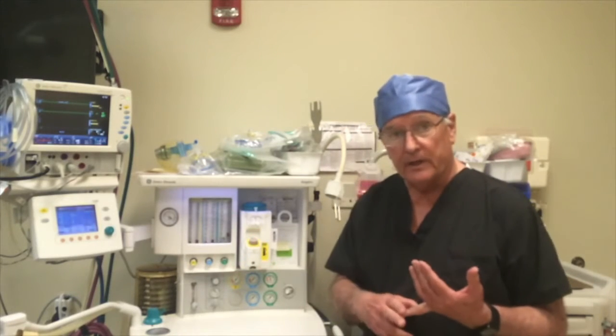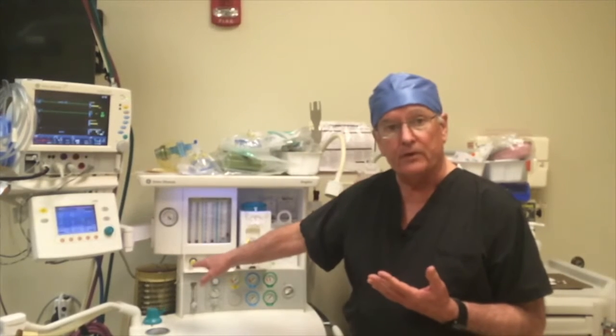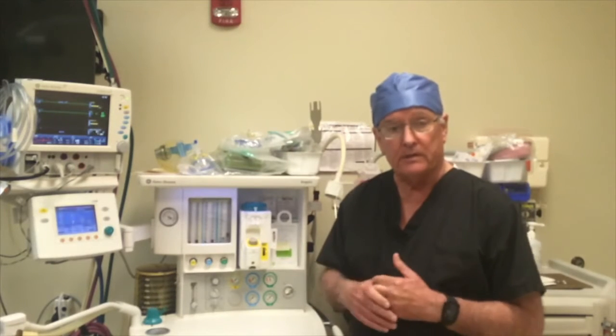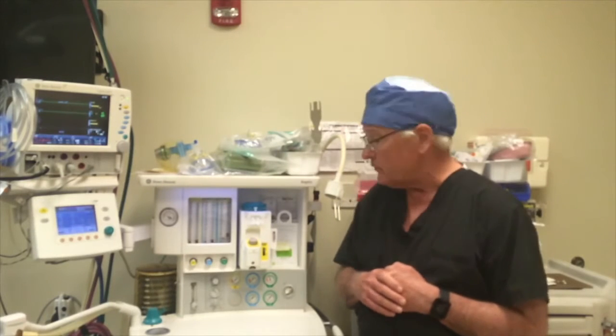The anesthesia machine is very different from a conventional ICU ventilator in that it's a low flow ventilator. Most of the tidal volume delivery bellows are powered by gas, and that's usually oxygen. You would have to go in manually and switch it over to air if you had problems with O2 availability at the institution that you're working at.